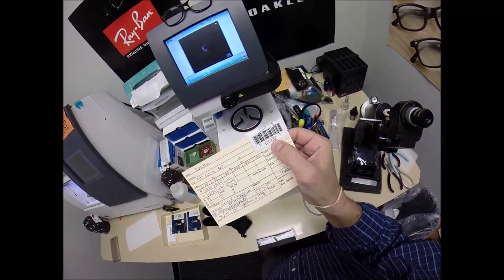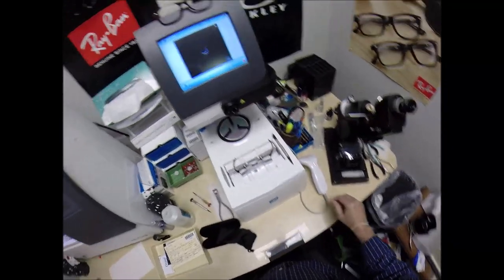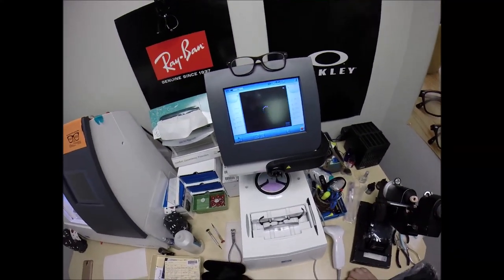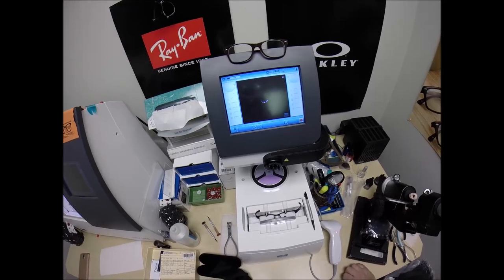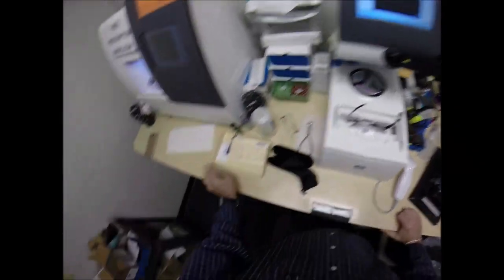Here at freeprescriptionlenses.com where everyone loves a bargain and no one is disappointed in quality. You buy a genuine authentic Oakley frame and you'll receive one free pair of clear single vision prescription lenses or non-prescription fashion lenses. My receipt has my federal ID tax number. So if you have vision insurance or flex dollars, you will get reimbursed for this purchase. Now, this shape has been programmed into the computer. So years from now should you ever need new lenses for this frame, I can send them right to your home.